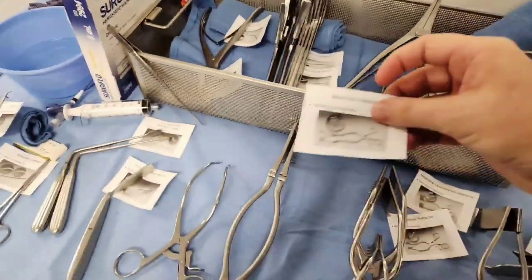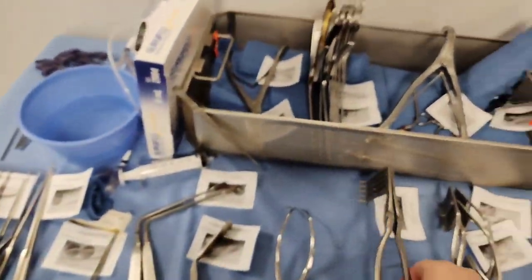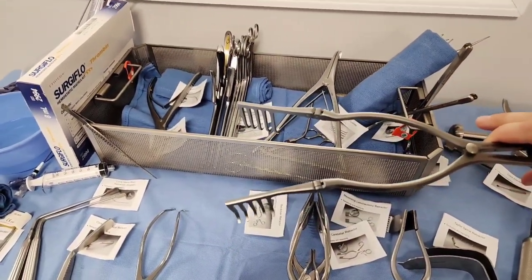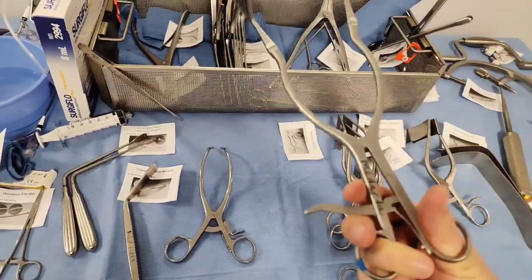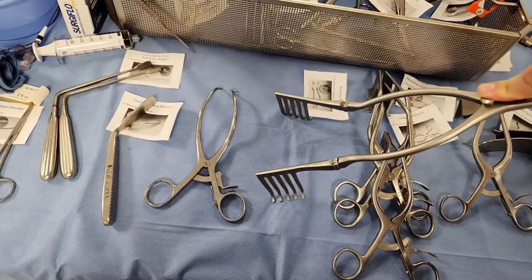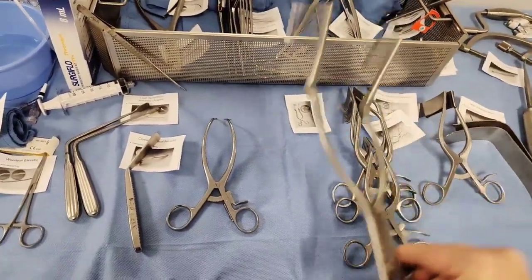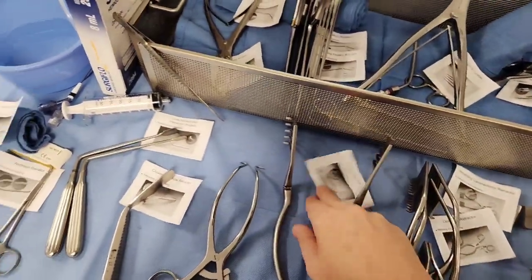Next we have the Beckman retractor — a very large self-retaining retractor. You can see how large this thing is. Used in back cases — let's say we're doing T1 to T12 — we're going to have a pretty large incisional site, so we need a large self-retaining retraction device. The only difference here is that a lot of those edges have an articulation to them; they articulate up. It's really all about exposure to that incisional site. The Beckman is the largest of the self-retaining retractors and has an articulating aspect to that edge.